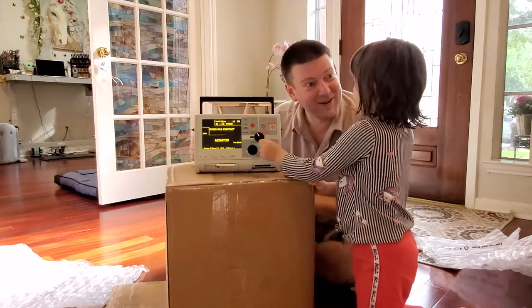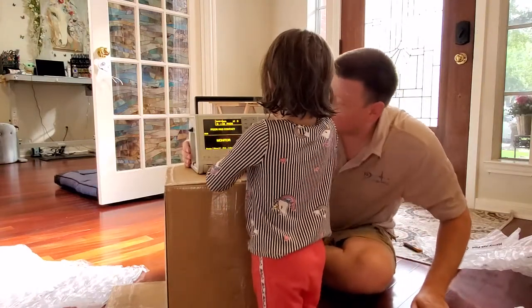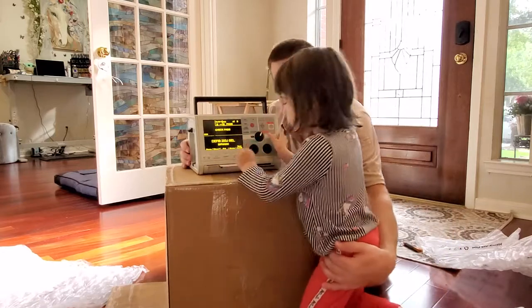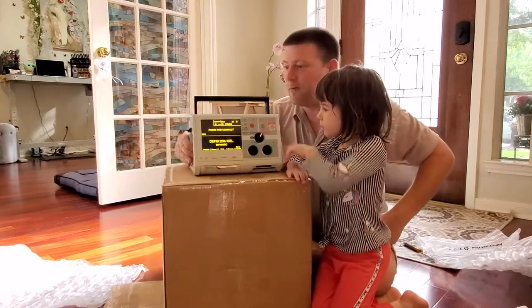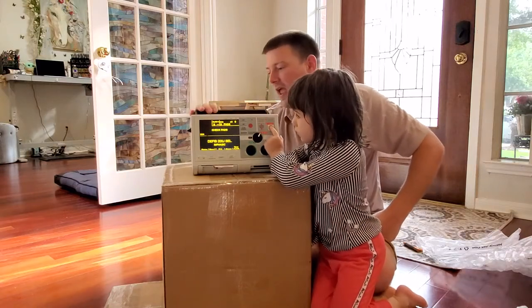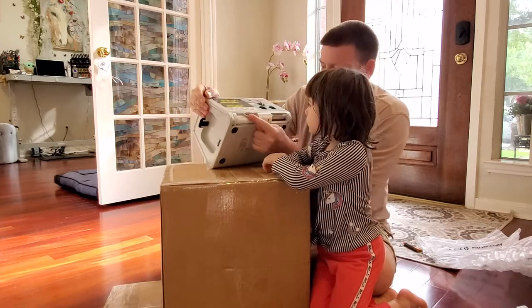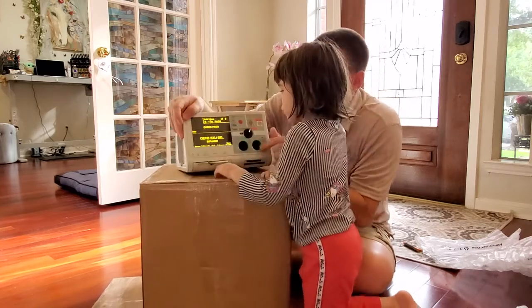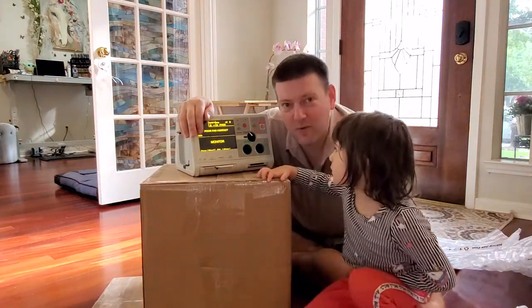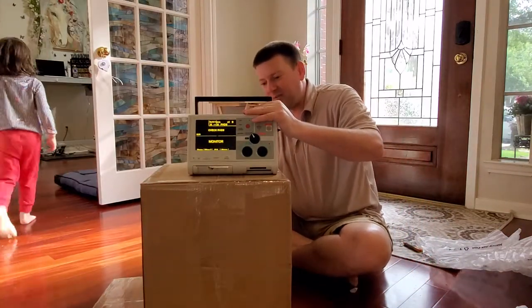You know how to turn it on — don't go shocking nobody. So this is a defibrillator. It's a bi-phasic defibrillator that maxes out at 200 joules. It's got SpO2 loaded on it. Here's your printer, you've got a memory card for event storage. Oh, and we have a complete set of test jigs — we are going to have so much fun with this.